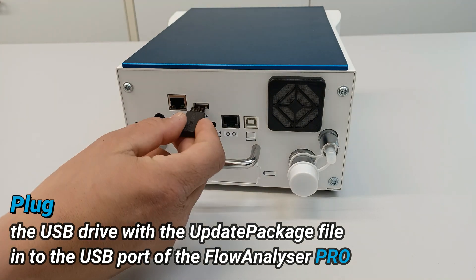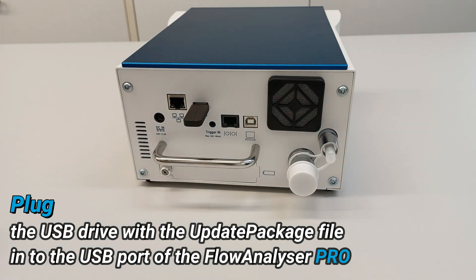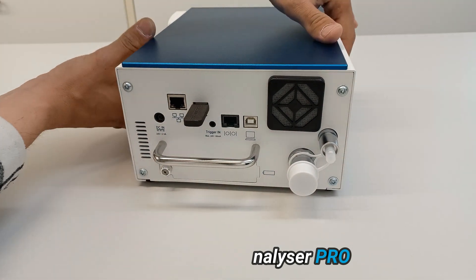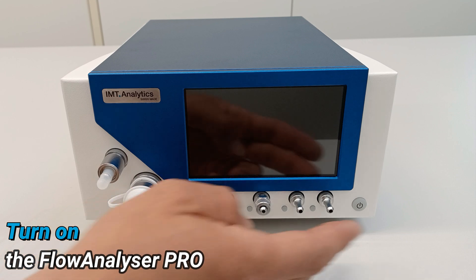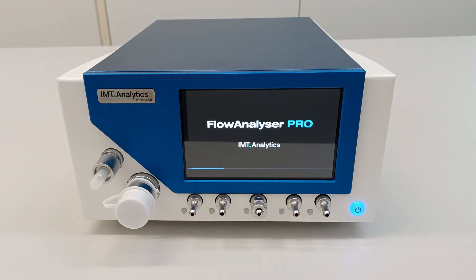Plug the USB drive into the USB port of the Flow Analyzer Pro. Turn on the Flow Analyzer Pro.